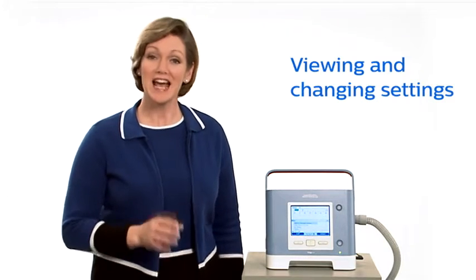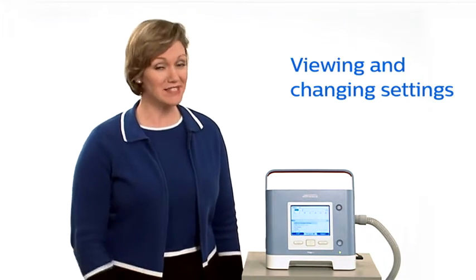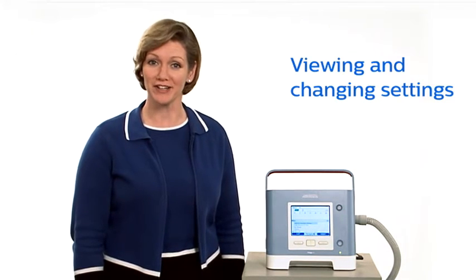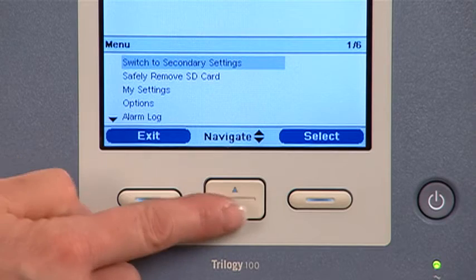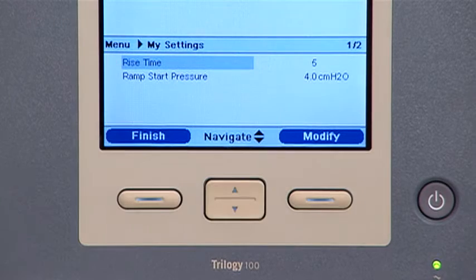Trilogy 100 allows you to view and change certain prescription settings if these settings were enabled by the home care provider. To do this, use the up-down button to highlight the My Settings option on the main menu. Press the button under Select, and the My Settings menu screen appears.